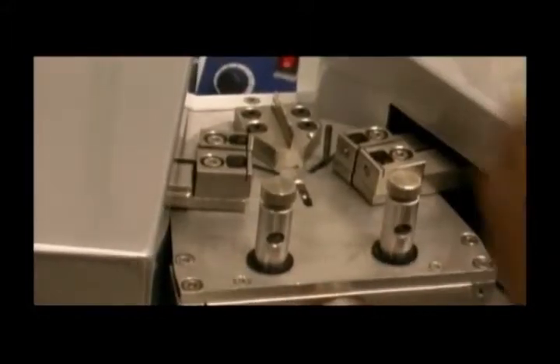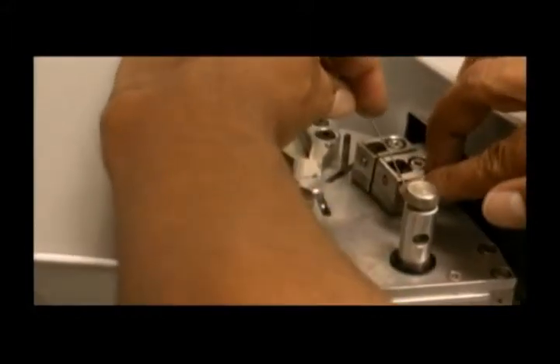The robot bends the wire in 2 steps. The first moves the anvils to a loading position that helps to easily place the wire in the bending slots. Once in position, the technician activates the final bend operation and the robot produces the final shape. And if required, the wire can be heat treated by pressing the front button. Then the wire is taken out and the excess trimmed.